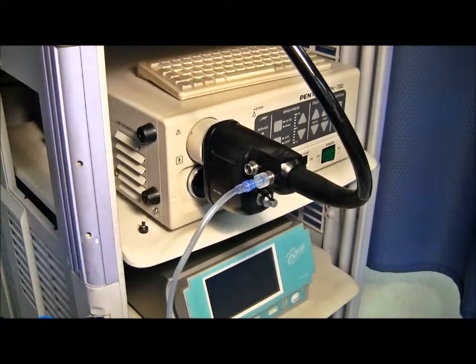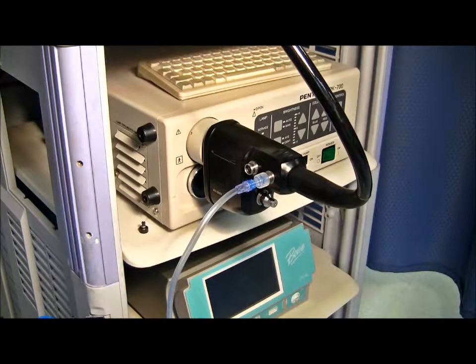In this final shot, you can see the endogator tubing connected to the Pentax reusable adapter, placed to the side next to the processor. A portion of this component was incorporated into the design of our single-use connector, essentially combining two pieces into one.